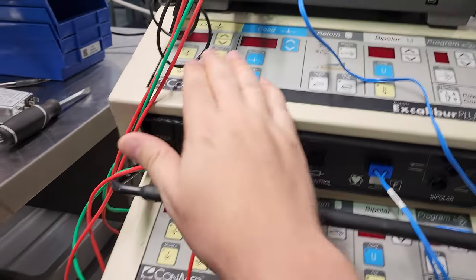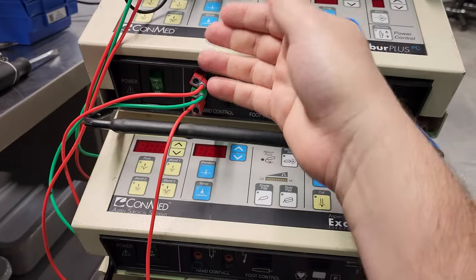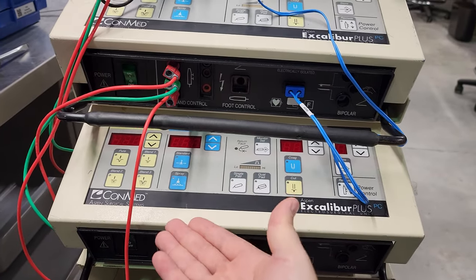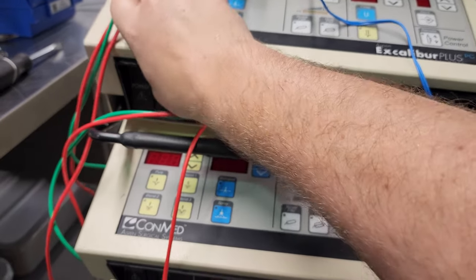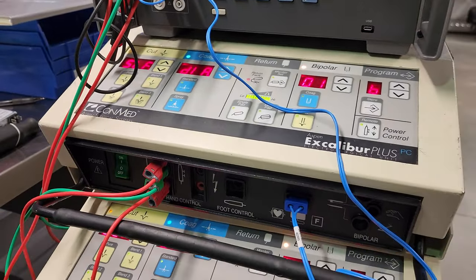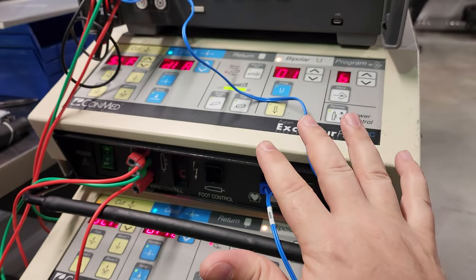So if the doctor is used to using these at 55 watts each, and then you come in and you test it and you go from the smallest quantity up to 300 watts, these devices are one of the examples where it will remember where you last left it.